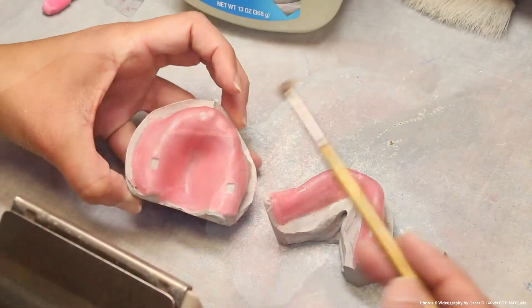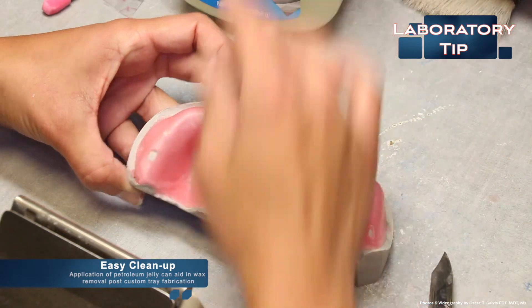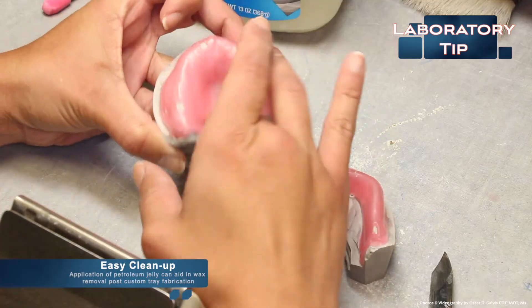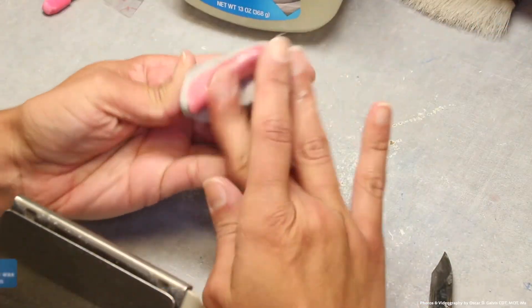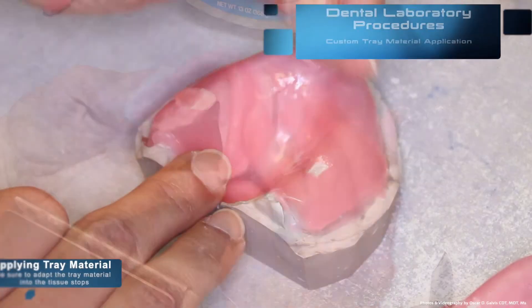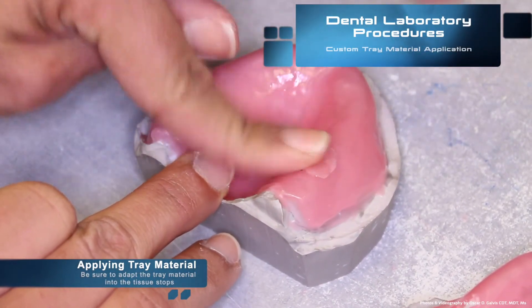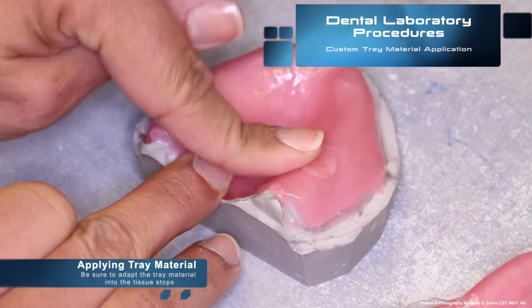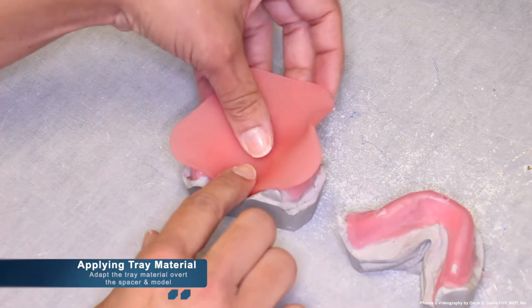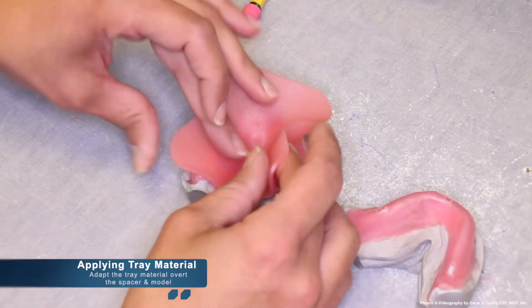Once the tissue stops have been made correctly, for easy cleanup, a tip is to apply petroleum jelly. It can aid in the wax removal after the custom tray has been fabricated. The next step is the custom tray material application. Be sure to adapt the custom tray material into the tissue stops first and then take a large sheet of custom tray material and adapt it on top of the spacer.